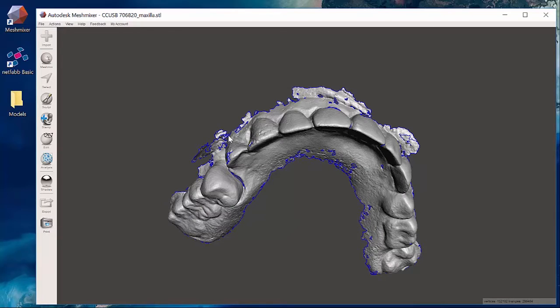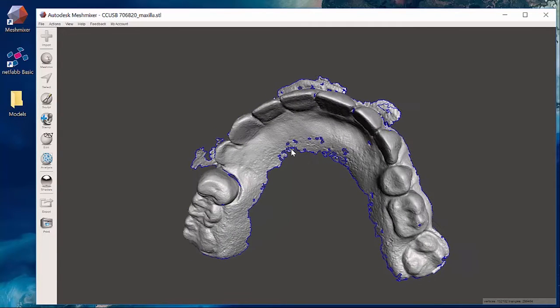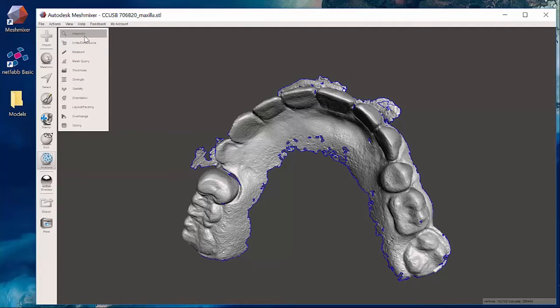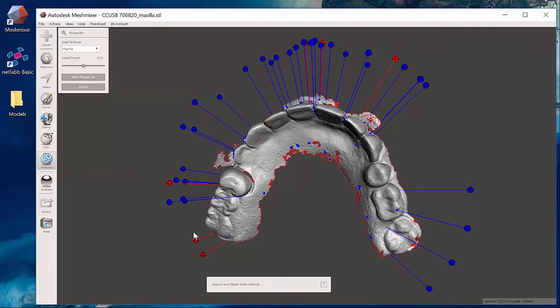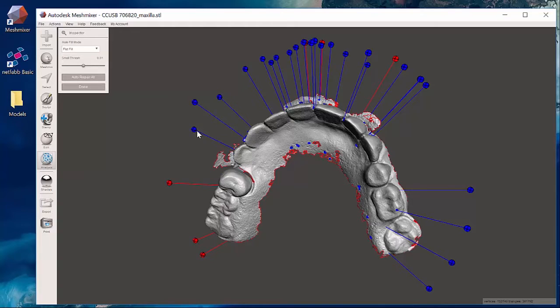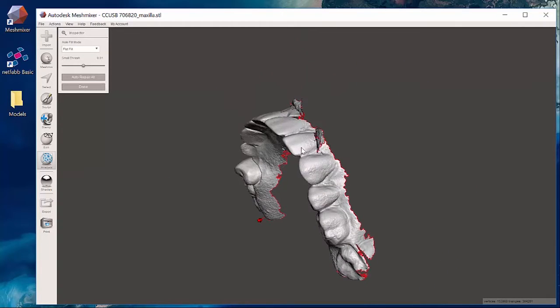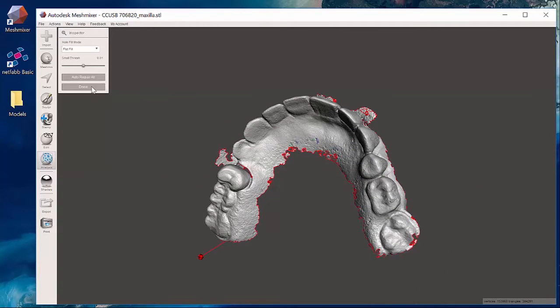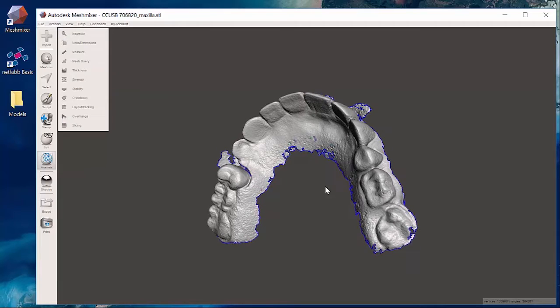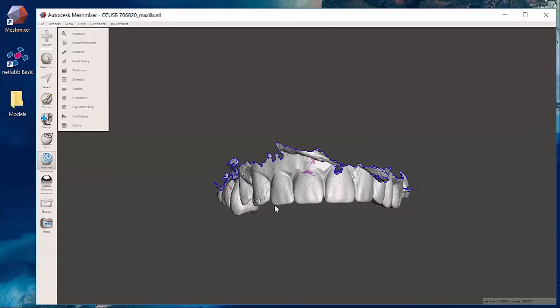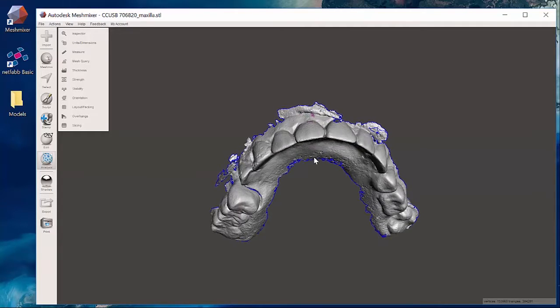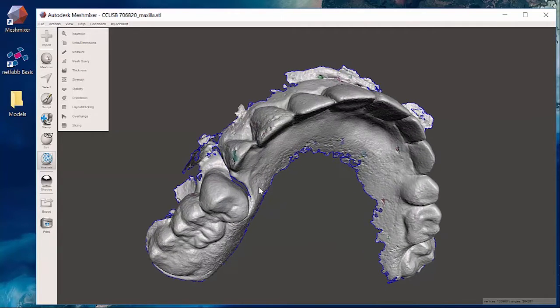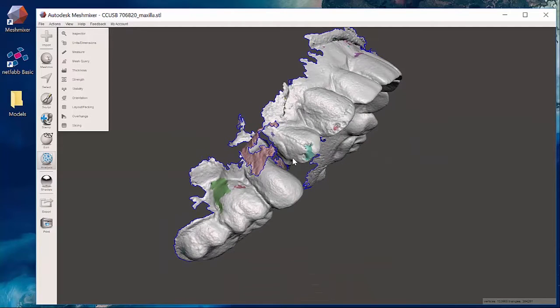Now of course what I could do is use my analysis and inspector button and clearing up my balloons. So now I have all my balloons cleared up. If I wanted to I could extrude this model, but the challenge is some of this extra material I have out the sides which will make for a really messy print.